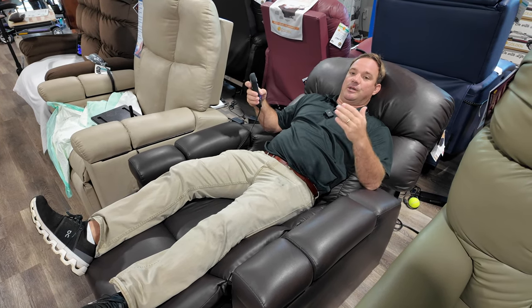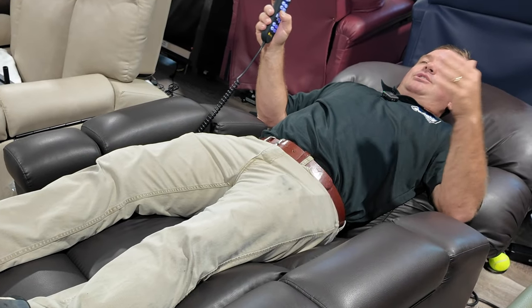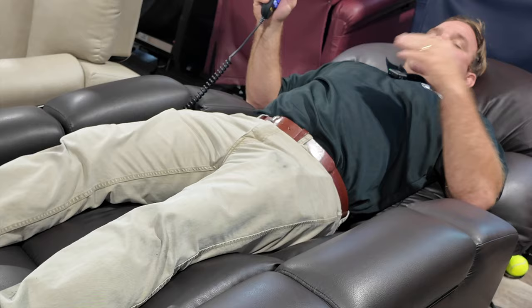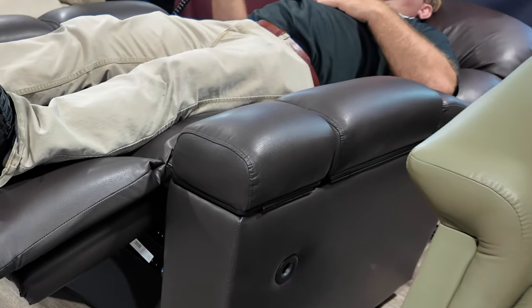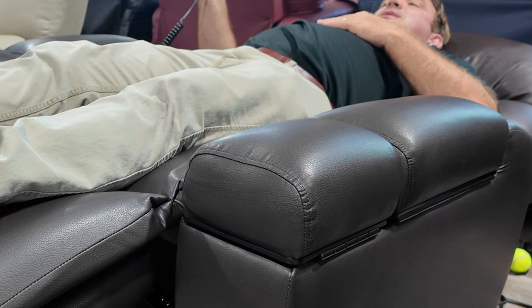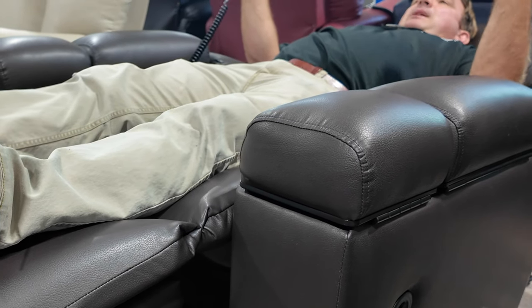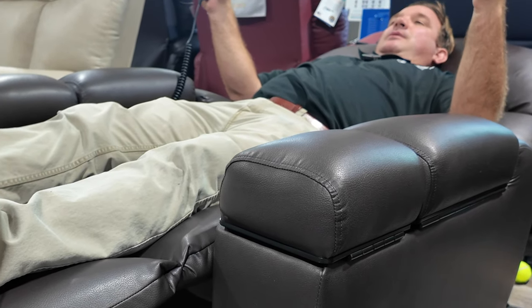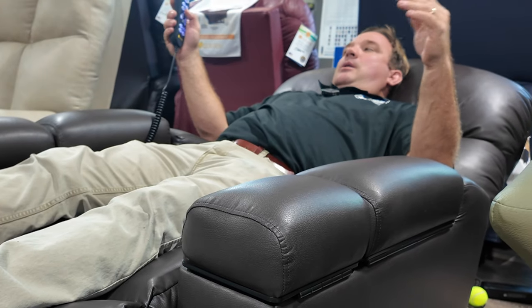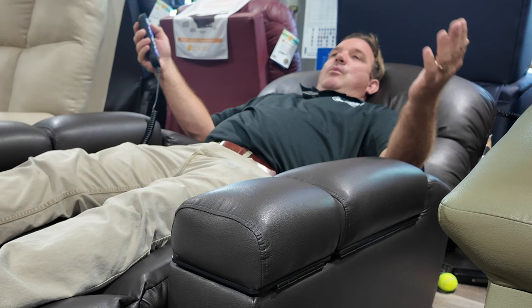If you don't need that but want your feet up or need to stretch your back, look how far this can go — this is the Trendelenburg position, stretching your back out and getting your feet slightly above your heart. To sleep, just hit the sleep button — the box drops a little. I don't like this default sleep position so I'm going to program it to where I want it.